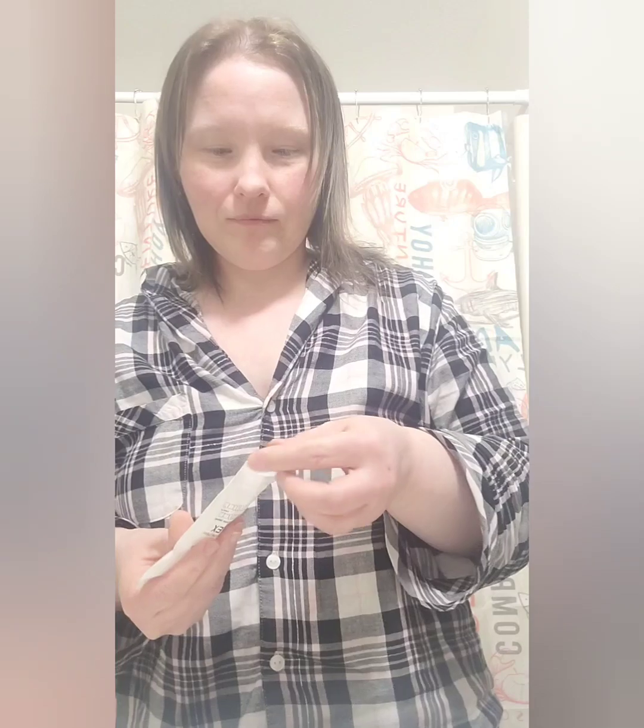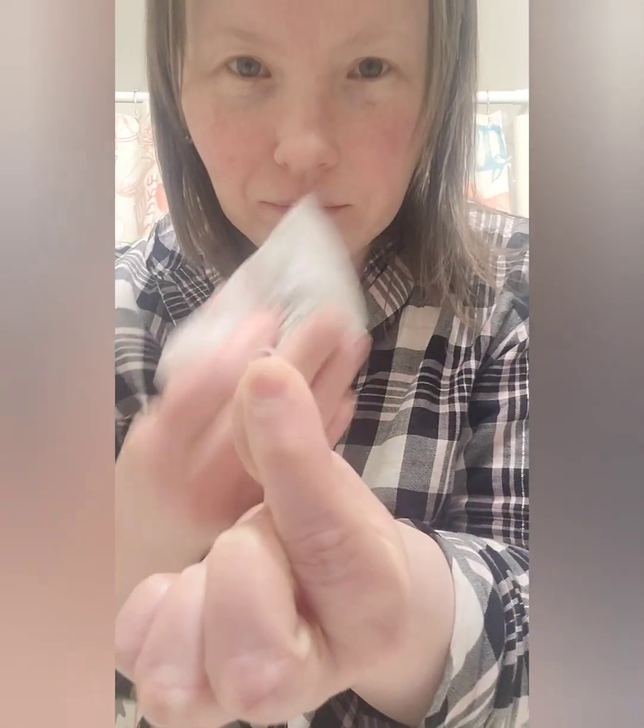Every morning I will take out my elastics and throw them away. They gave me all-clear ones — you're not going to see them, they're clear. They're so tiny! While I was at the orthodontist trying to get the elastics on, I ended up swallowing one. I looked it up and took a few pointers from what they said.